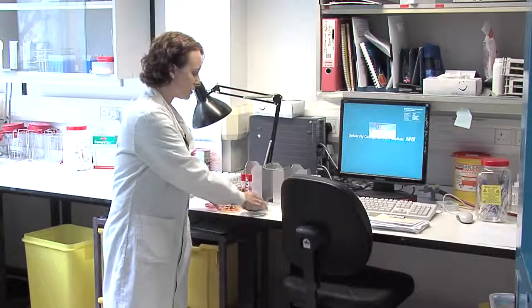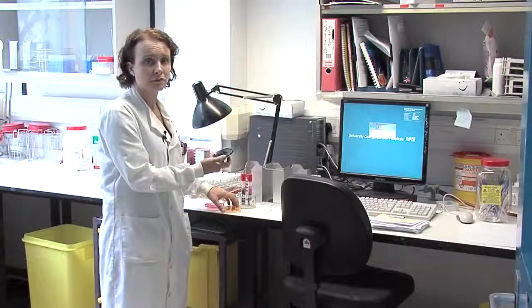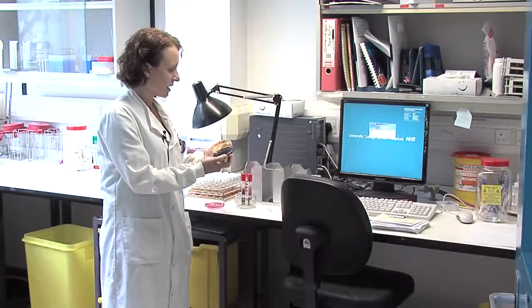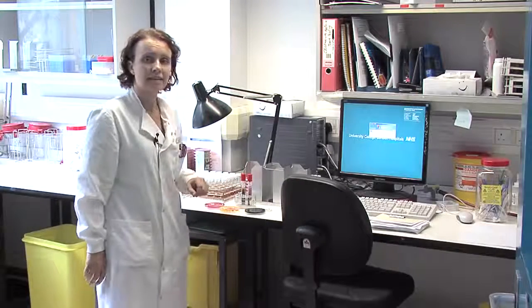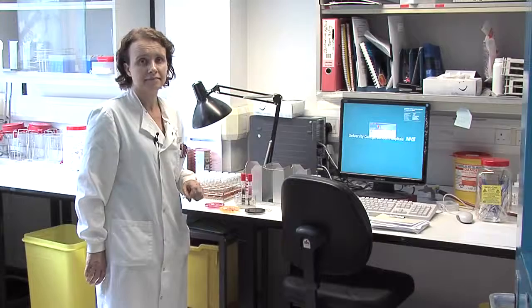We use various culture media, very selective agar, to look for Campylobacter and Salmonella. And then we would follow up culture growths using various biochemical tests and serology tests.